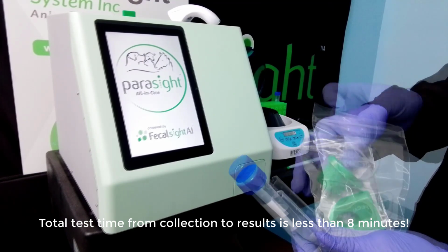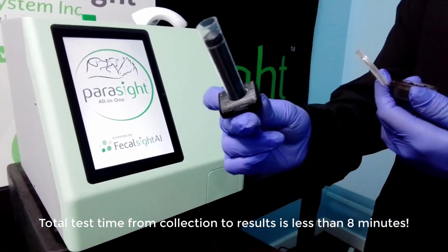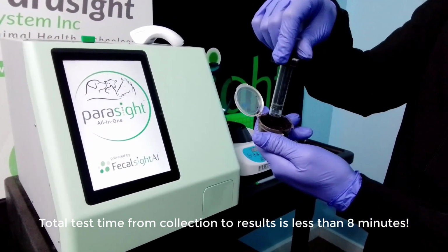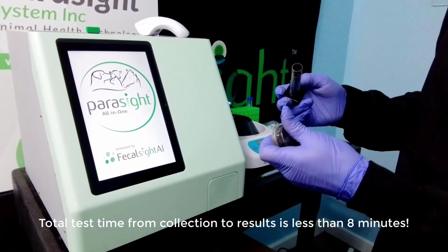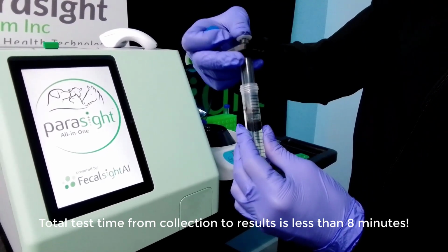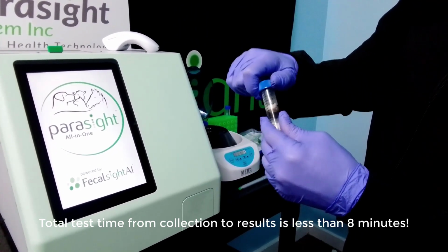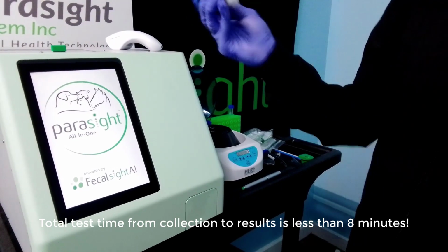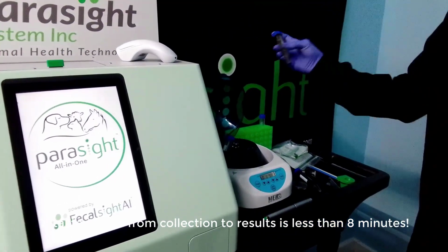We will demonstrate how to perform a fecal test with both a 1 gram and a loop sample. For a 1 gram sample, use the reusable coring tool to collect the sample. Eject the collected sample into the pre-filled centrifuge vial. Attach the cap to the vial and shake vigorously. Place the vial into a counterbalanced centrifuge and spin for 1 minute.